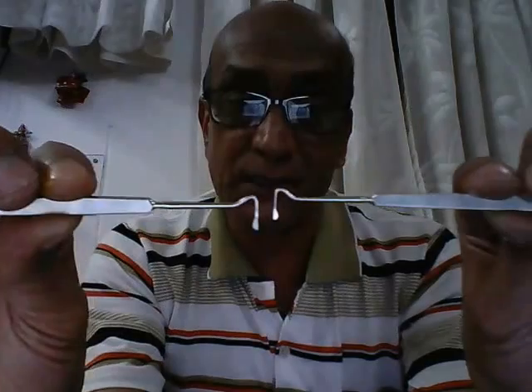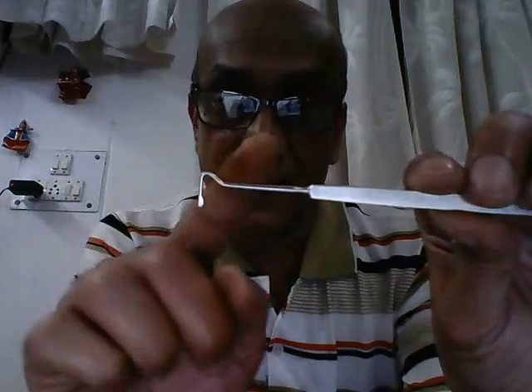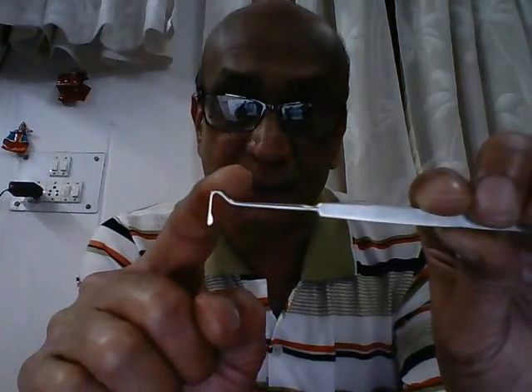Taking a closer look at this instrument, I am holding the stem, and this is the portion which is used to hook up the muscle. There are two special noteworthy points about this end of the instrument. First, we can see that it has formed a double angulation, which is the actual hook responsible for hooking up the extraocular muscle.